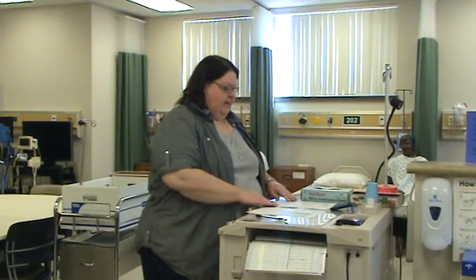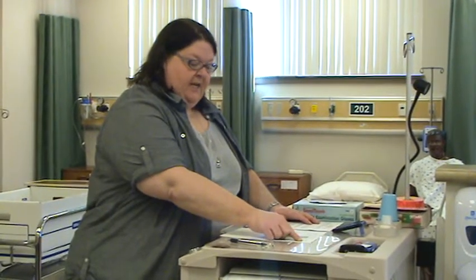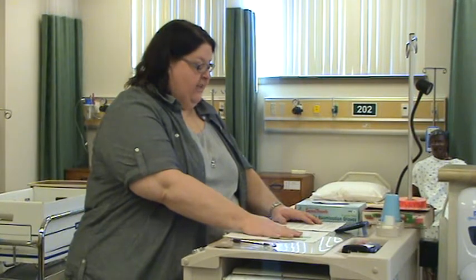Step one: verify my order. I would either find it in the chart as a new order and transcribe it on my MAR, or I have it on the MAR. In this case, it's on the MAR. For Winnie the Pooh in bed 211, MRN 1929-569, I need a 250-milliliter bag of normal saline with 125 milligrams of Diltiazem (Cardizem) to infuse at 10 milligrams per hour IV due now.